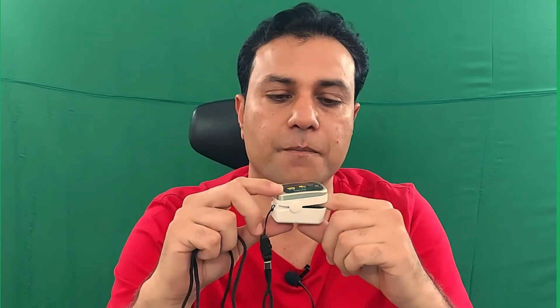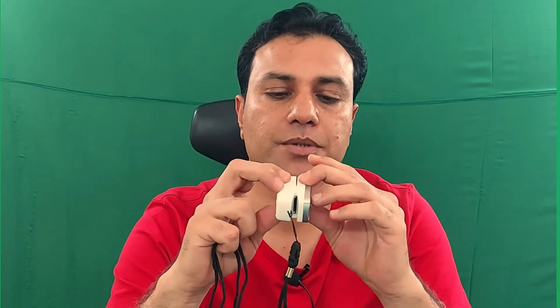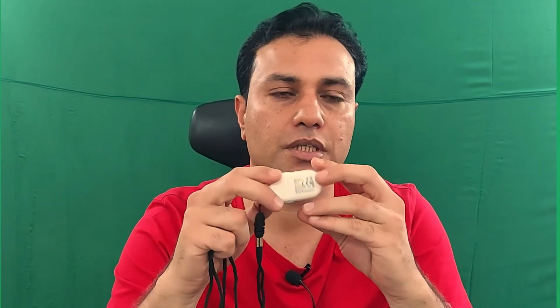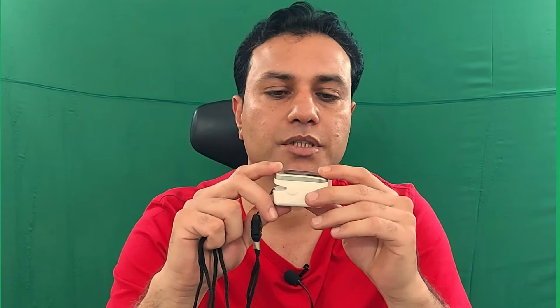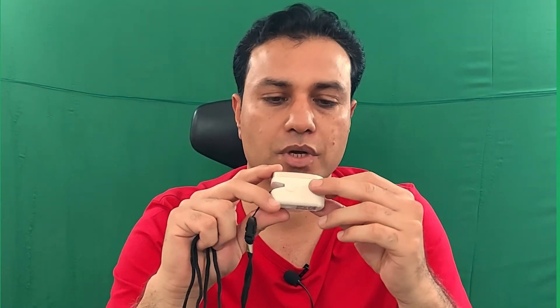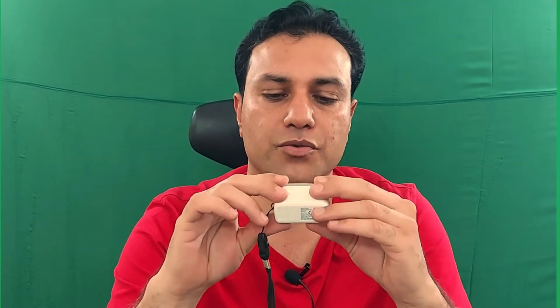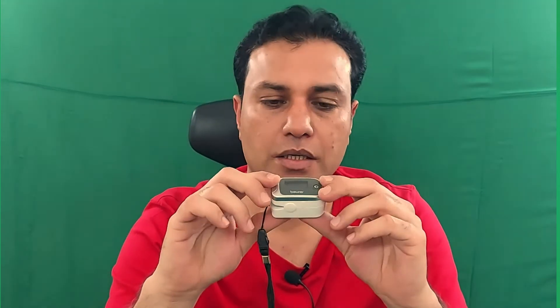The price of the pulse oximeter depends on the company — there are many companies available. You can check online and find a more suitable device for yourself.